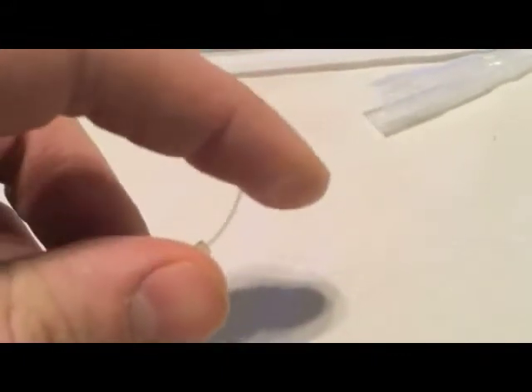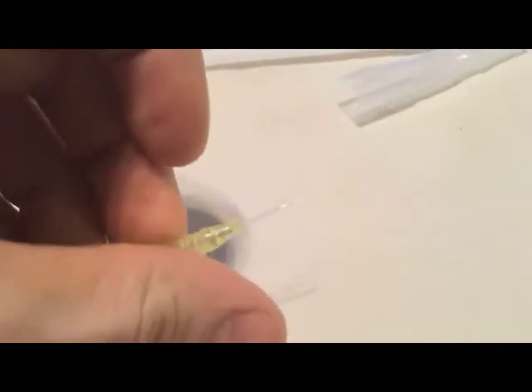Sometimes it's helpful to point out that this part is not sharp and will bend underneath your skin. Again, small bendy tube or a straw.